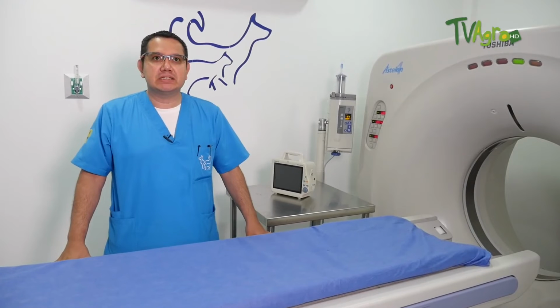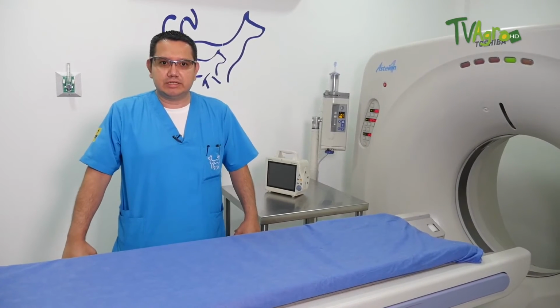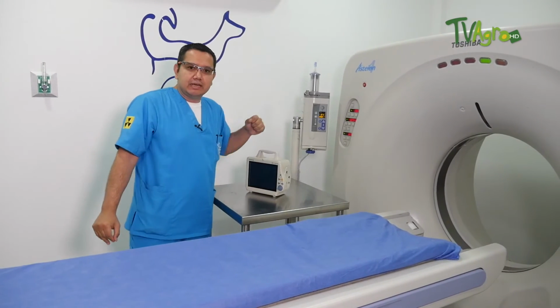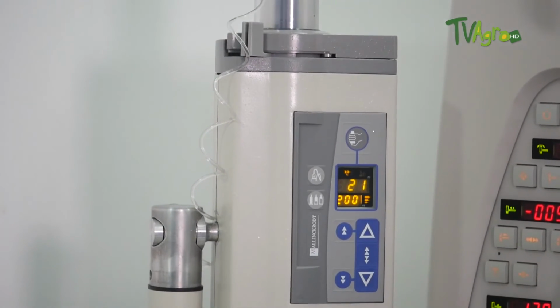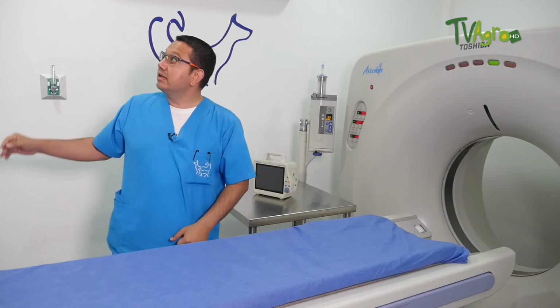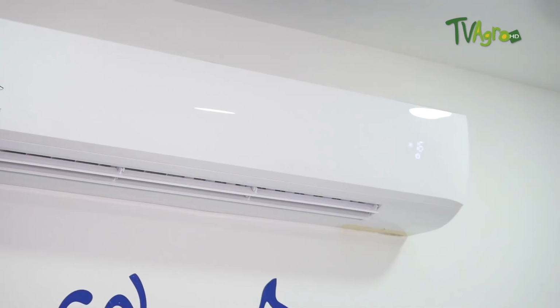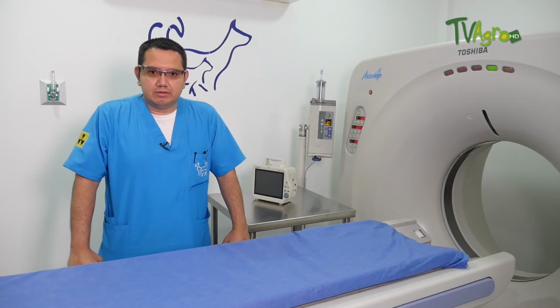Very well. This facility consists of a fully shielded room, which meets all the standards required by the Colombian regulation in terms of ionizing radiation. We also have an injector, with which we apply the contrast dye to patients who require it. Also for the equipment, because 90% of the X-ray energy becomes heat, we have to have an air conditioner which should commonly cool us to 19 degrees. You could go down to 16, but it is really done to make up for the size of the room.